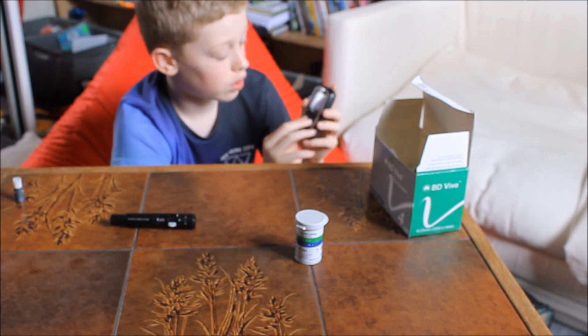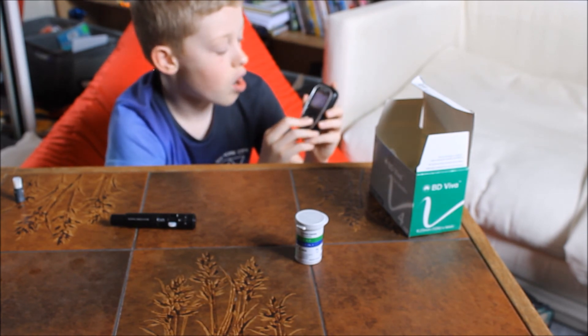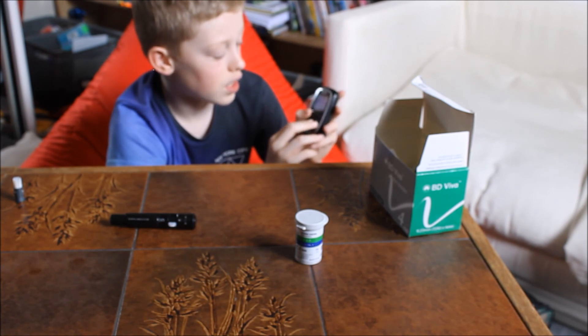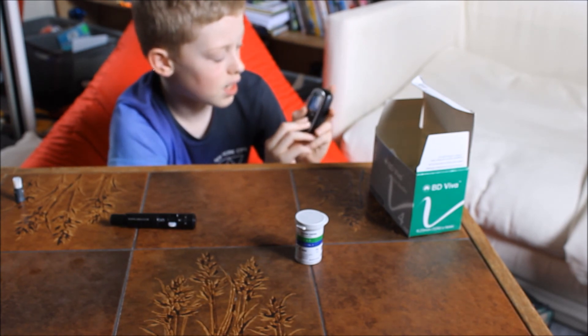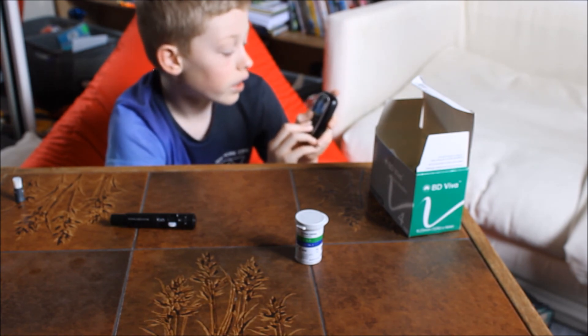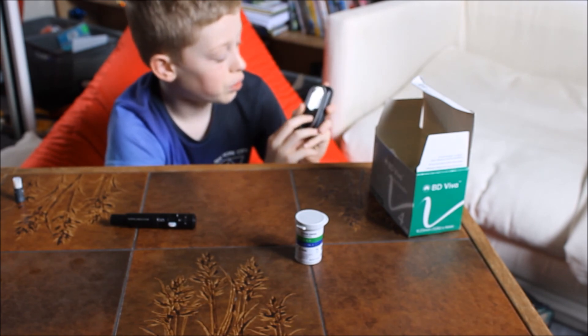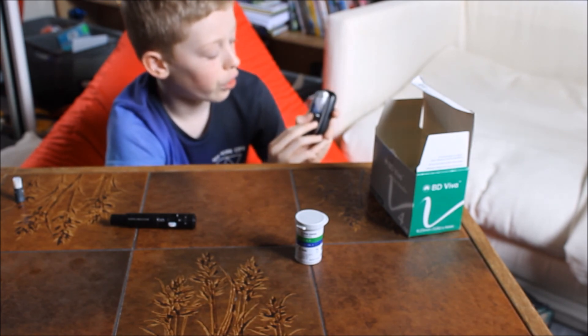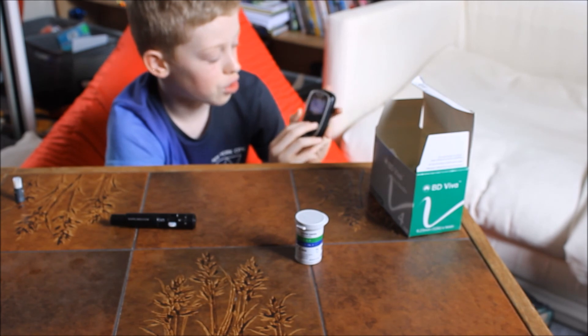You can go on to meters. I advise that you don't change any of that. The only thing that I would say is you can change reminders if you want. That's the only thing that you should be changing.